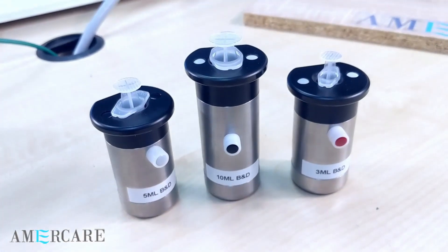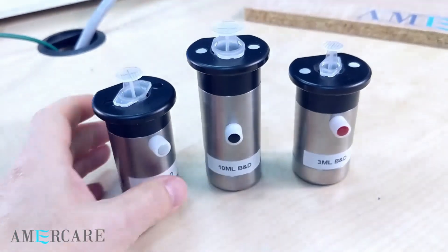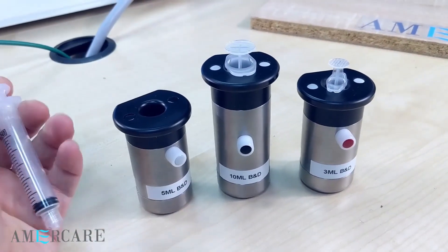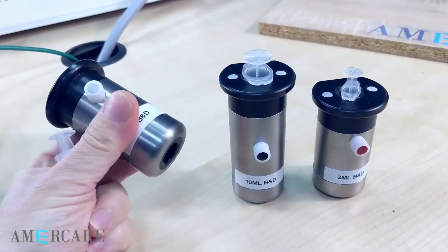The syringe shields are specifically designed for each making type of syringe. So each syringe has its own different type of shield.